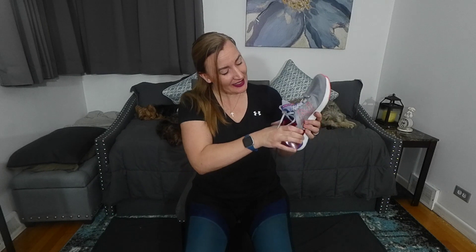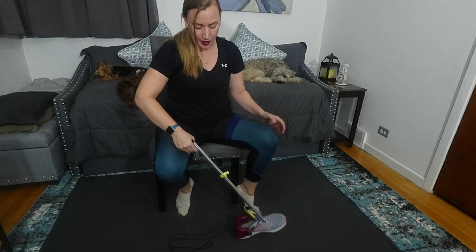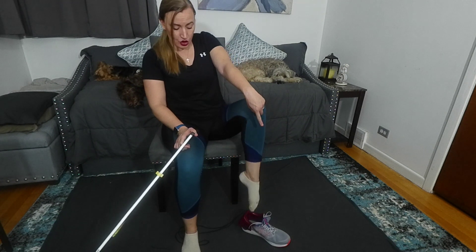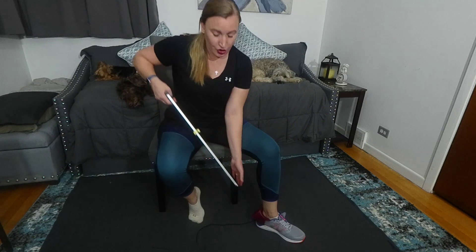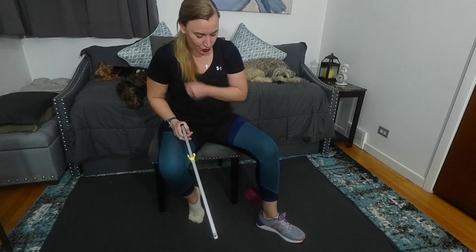Then take the plastic and put that inside the shoe. Either use a reacher or bend down to place the shoe on the ground, keeping the strings out of the way. Point the toe, slide the foot down and in. To remove, use those strings — either bend down or use a reacher to grab them and pull right up. Either tie your shoes or flip that tongue and smooth it out.